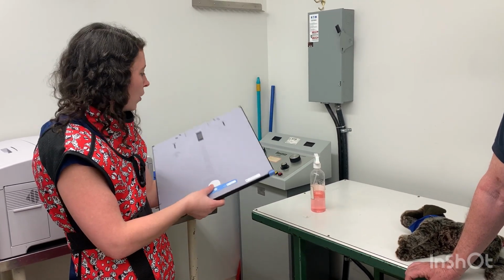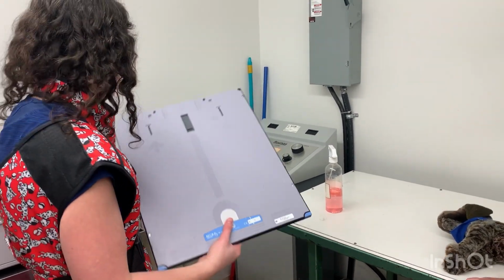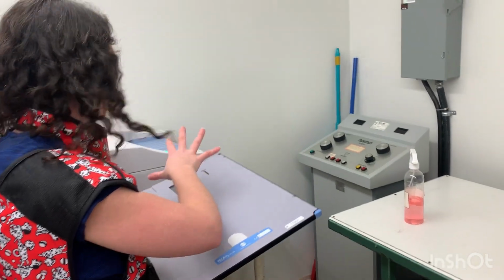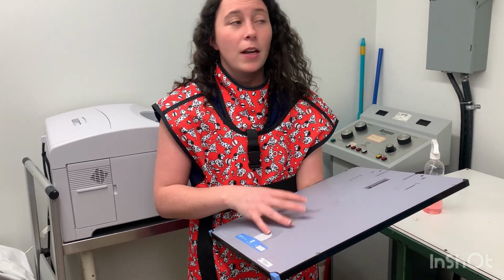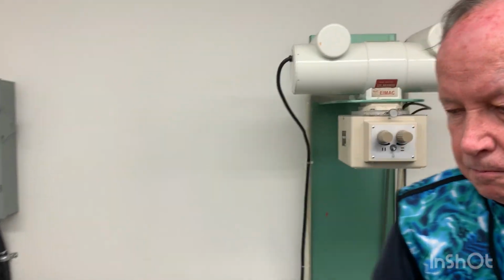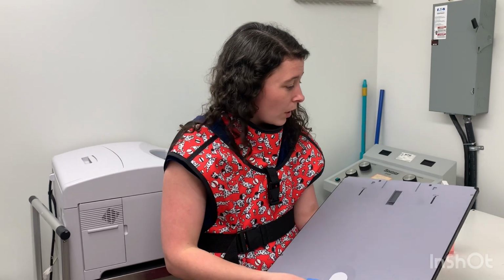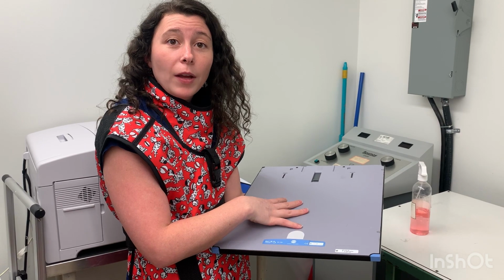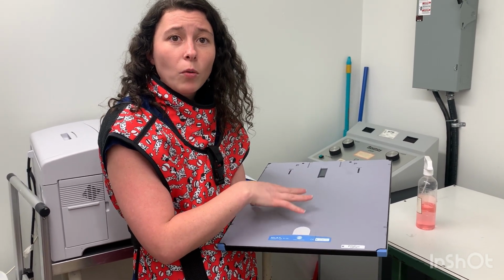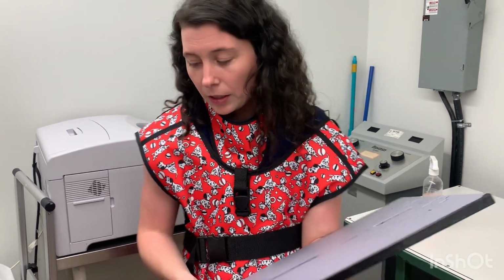First, we need to clear our PSP plate, making sure that we don't have any static on the plate. We're working with a CR system. I've already pulled off the covers on my CR system here, on my processor and on my unit itself. So what's happening with the CR system is we take a radiograph, and we end up getting an image sent into here, and it's going to become a latent image, and it's going to store photons in our PSP plate.